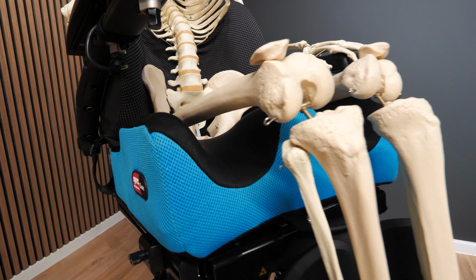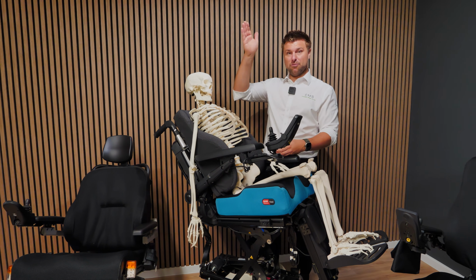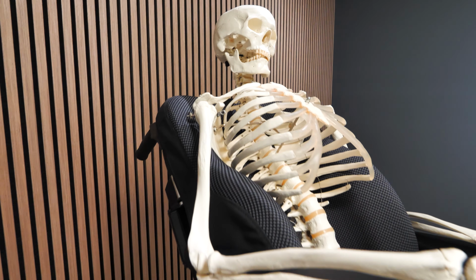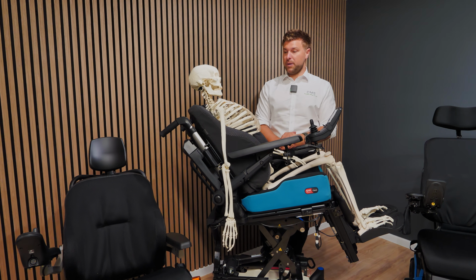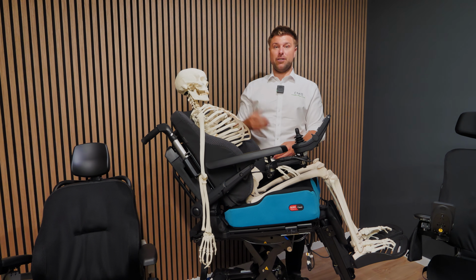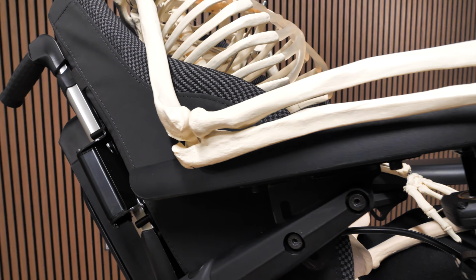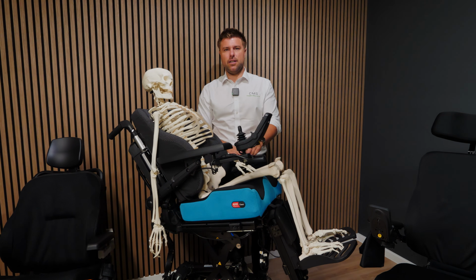But that naturally has an effect: rolling our pelvis, not supporting our back correctly and creating a really quite significant curve in the spine. So not good at all. That also has an effect on reach. The further back we are, the further away we are from the joystick, so our reach is going to be further. That could encourage the shoulder to come forward, which could encourage a little bit of rotation as well as the tilt. So lots of consideration. Don't get me wrong, backrest recline can be beneficial, especially for lots of different daily functions and for positional support, but the effects are important to note.